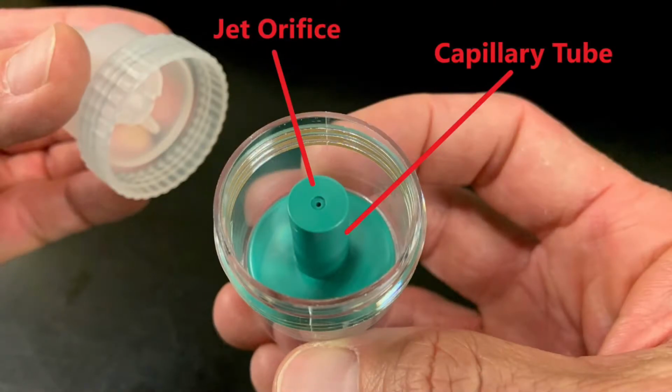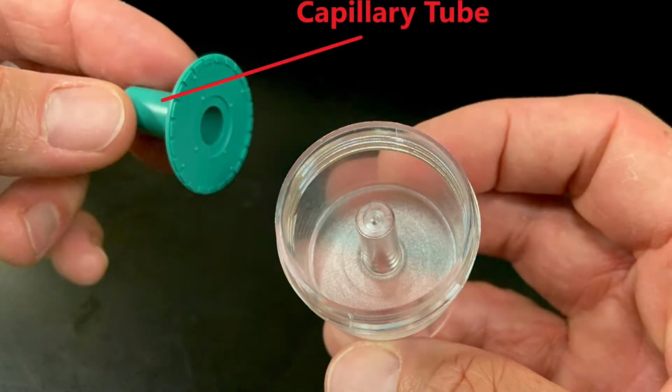When I take the cap off of the device, you can look inside. This is where the medication goes. Now I've identified the capillary tube and jet orifice. This piece is important for allowing the medication to be drawn up and sheared off into aerosol particles. Once I've removed the capillary tube, you can see where the source gas enters the device from the port in the center of the small volume nebulizer.